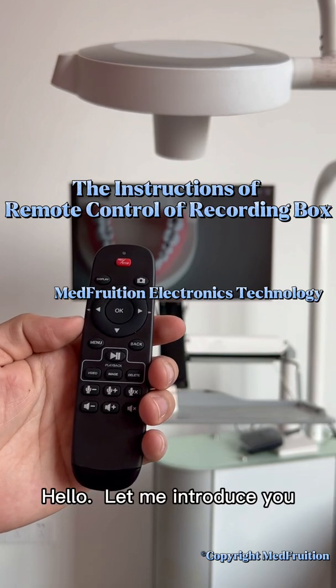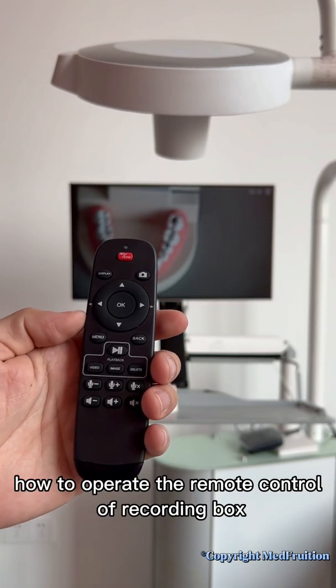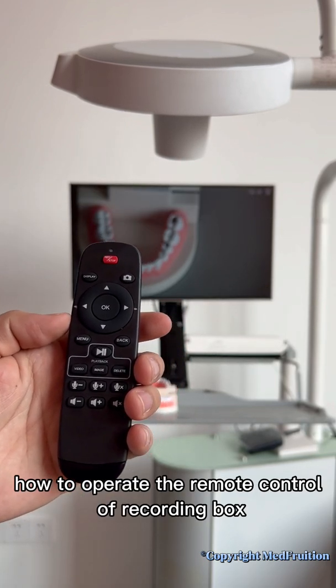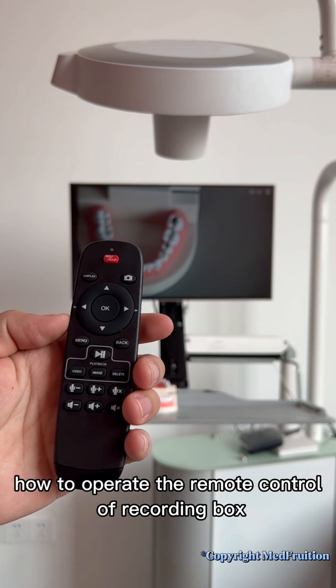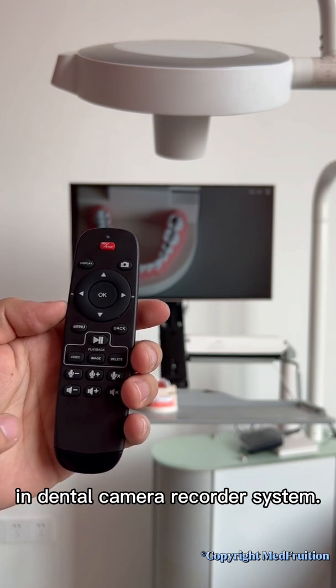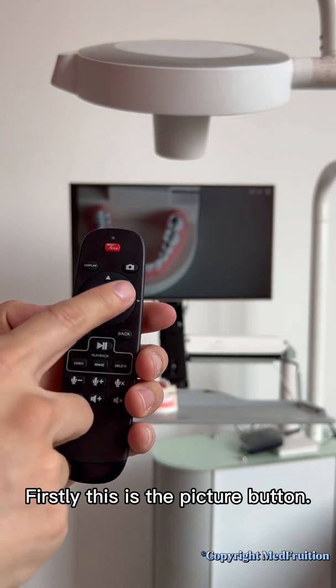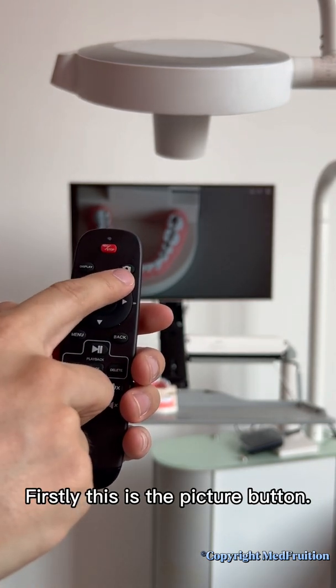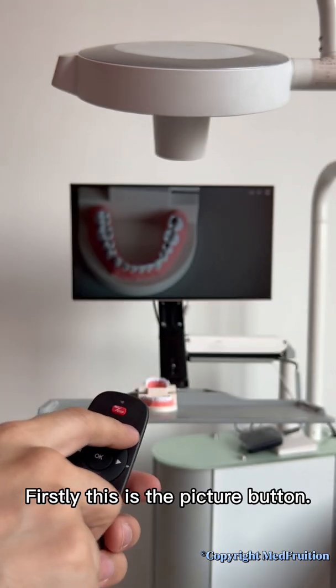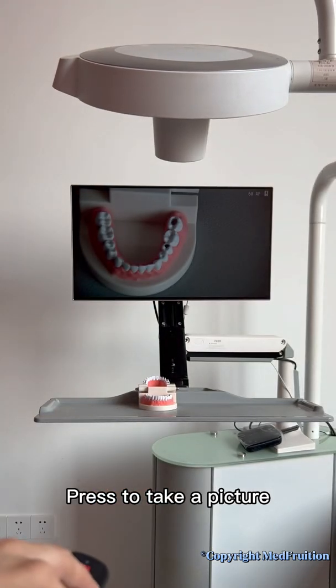Hello, let me introduce you how to operate the remote control of the recording box in the dental camera recorder system. Firstly, this is the picture button. Press to take a picture.